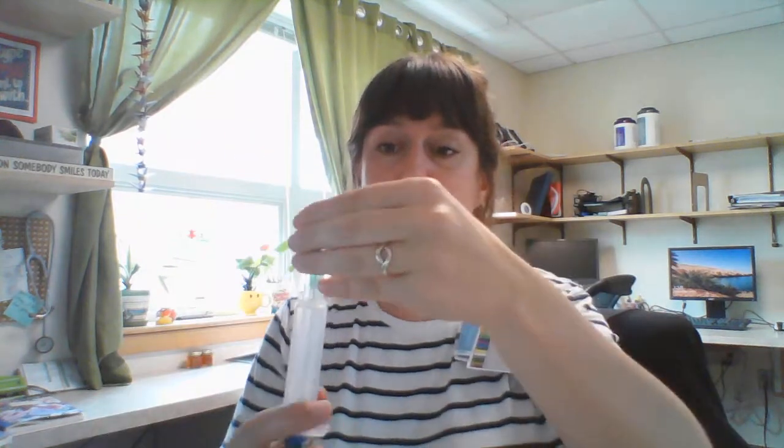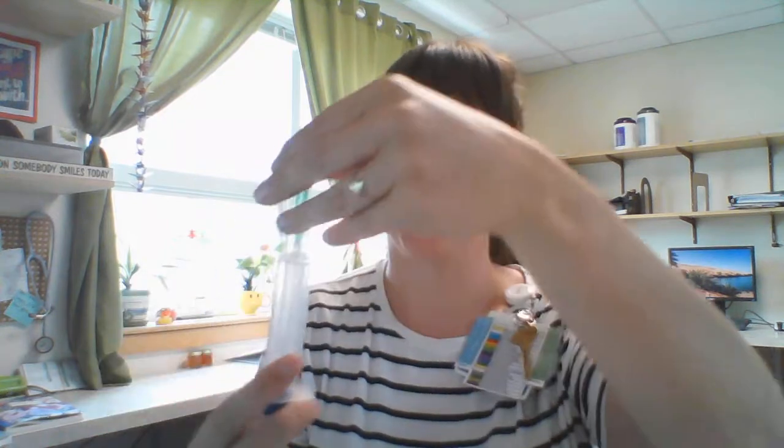To assemble, pop off both end caps and screw the two ends together. As with an adult code, flush through the dead space to get epinephrine all the way to the tip. One caveat: the needle end can separate — that happened in my very first code. Also notice that the mL markings on this pre-filled syringe are not very accurate, so you wouldn't reliably be able to draw 1.7 mL from it directly.